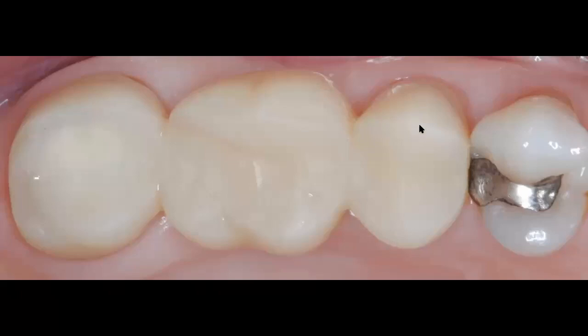So what you're seeing here is that now I have these two abutment teeth, which are the premolar and the second molar, and I have this pontic area, which is the first molar. On the day of surgery, I'm going to use this temporary fixed dental prosthesis as my surgical guide. Again, I'm just trying to share with you a little bit of tips and tricks of things that you can do in your office to simplify certain dental procedures and go about performing your surgeries, specifically today in relationship with implant dentistry.